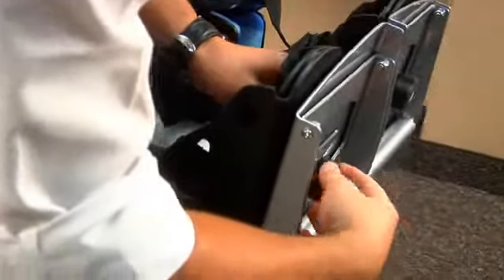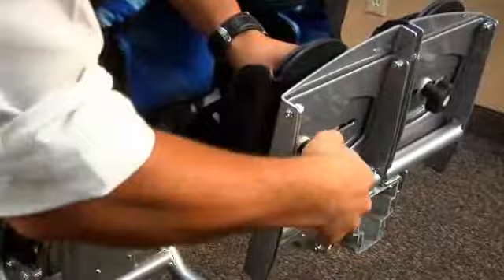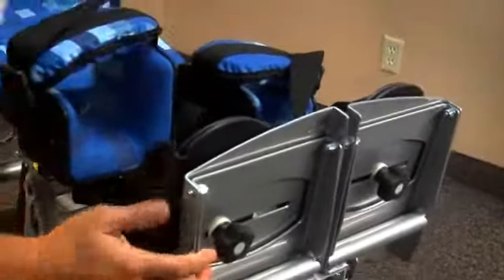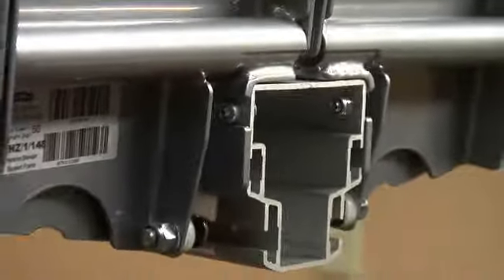The foot plate from the side here is height adjusted via Allen key. So depending on whether the user has any sort of leg length discrepancy, you can independently height adjust the foot plate. You have a range of sandal options available, and they're width and angle adjustable via this knob on the bottom. You have also a safety lock here, which stops the foot plate from falling off. That's a very useful safety feature of the product.